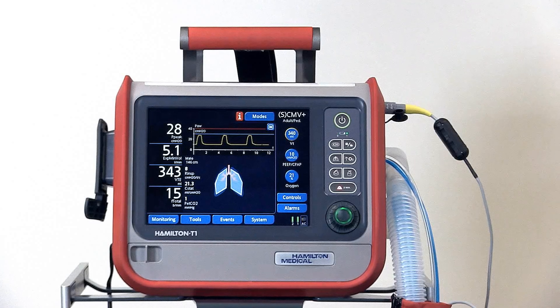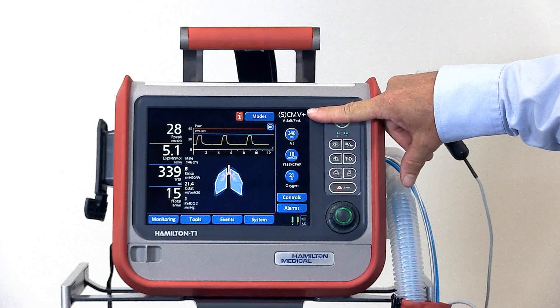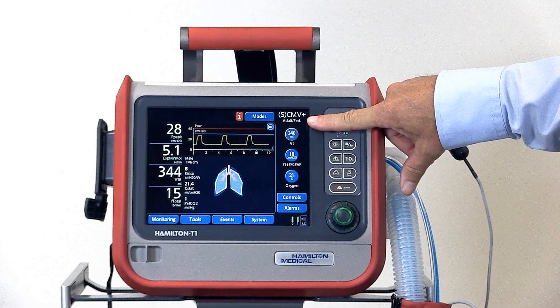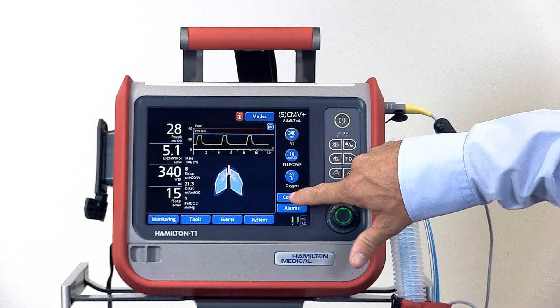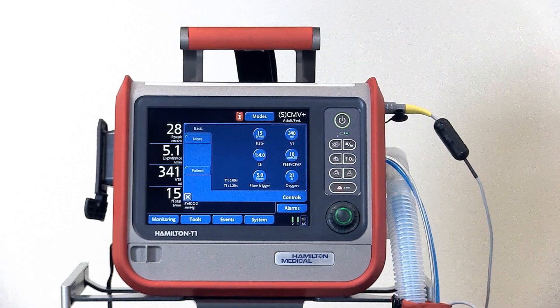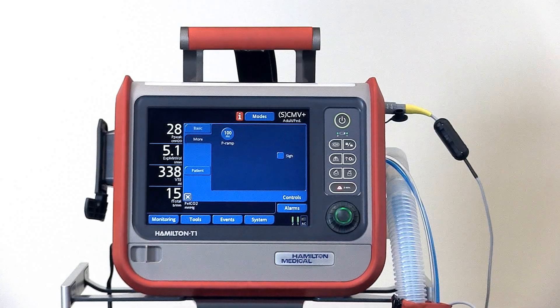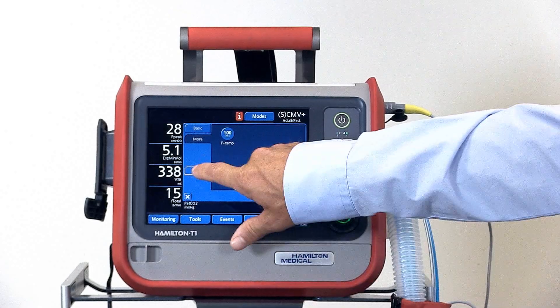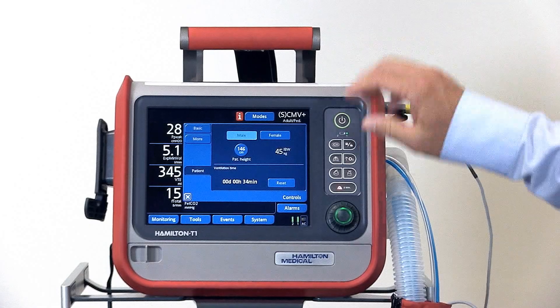Starting at the top right and going clockwise, you can see the current mode, patient population, and basic ventilator settings. There is the control window with all the controls — two windows for controls: basic and more — and the patient information window where you can readjust the patient information.